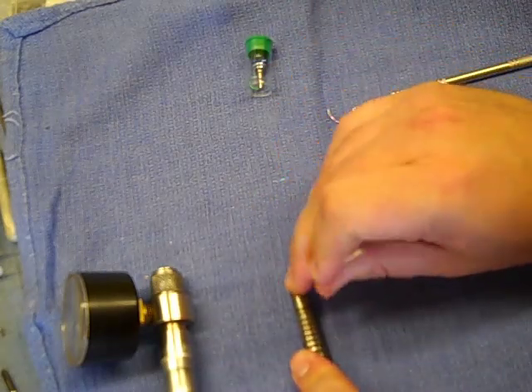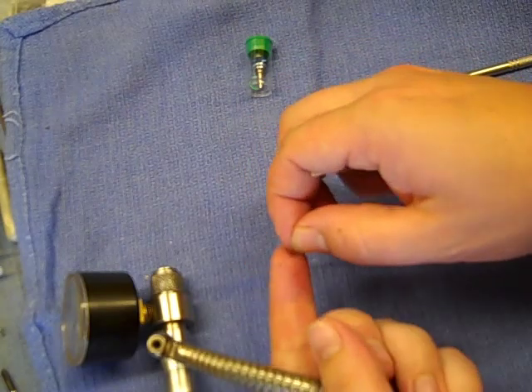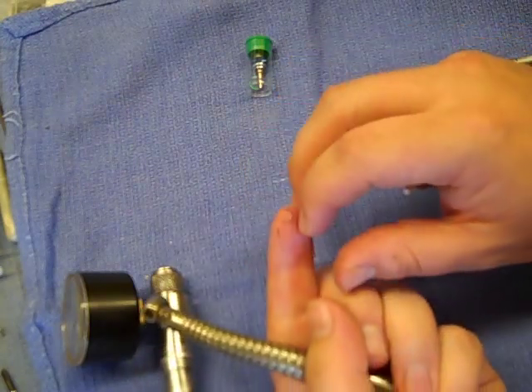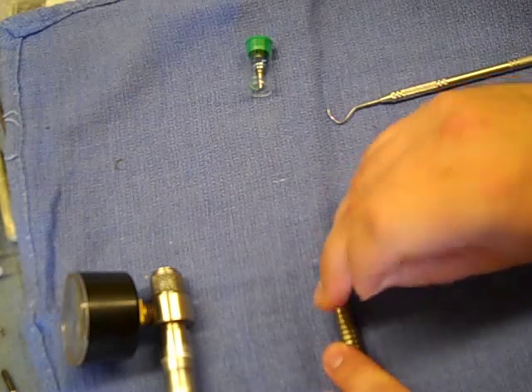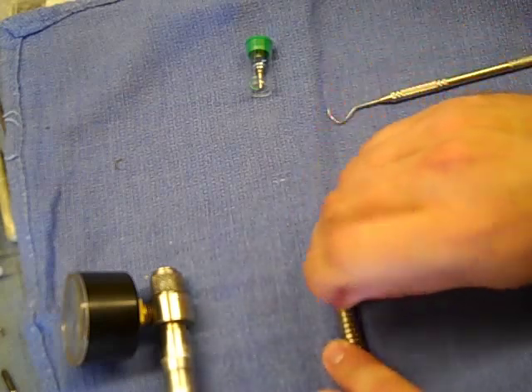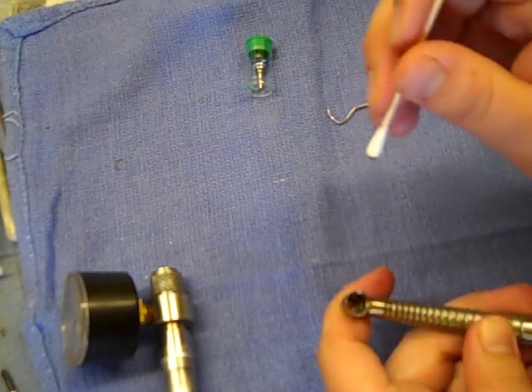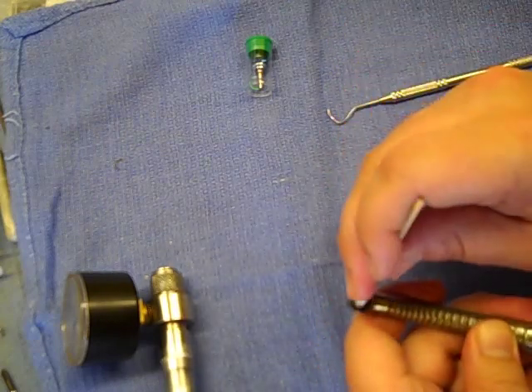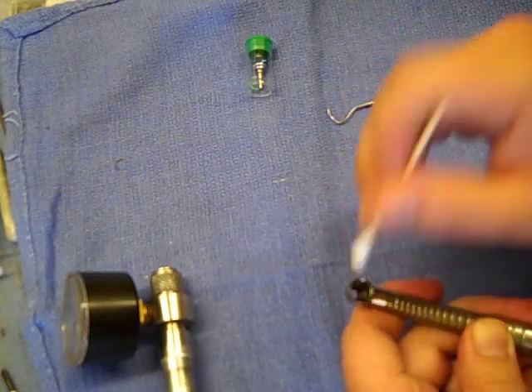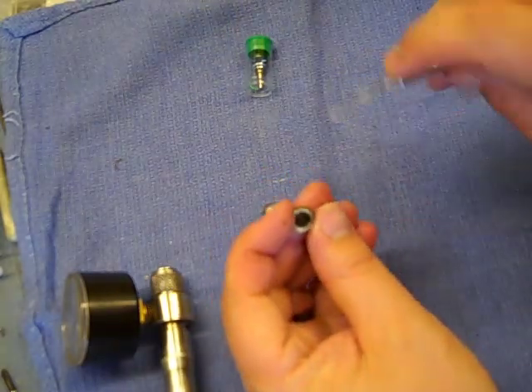Look in there to make sure there are no parts of the o-ring left. Use your cotton swab — you can see that part of that bearing was left in there, so make sure you get that out. Clean it up. If you have to, you can use some handpiece lubricant or some rubbing alcohol. Don't use any solvents — nothing like WD-40 or anything like that. That'll damage the bearings if there is even a trace amount left behind. Once that head is clean, set it aside and we'll move to the end cap.